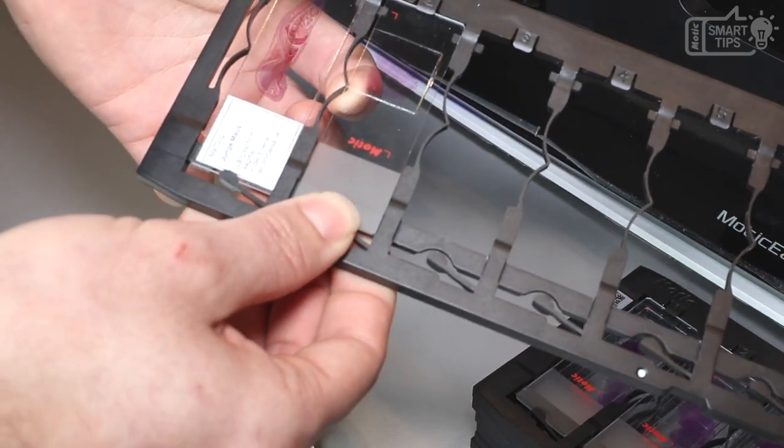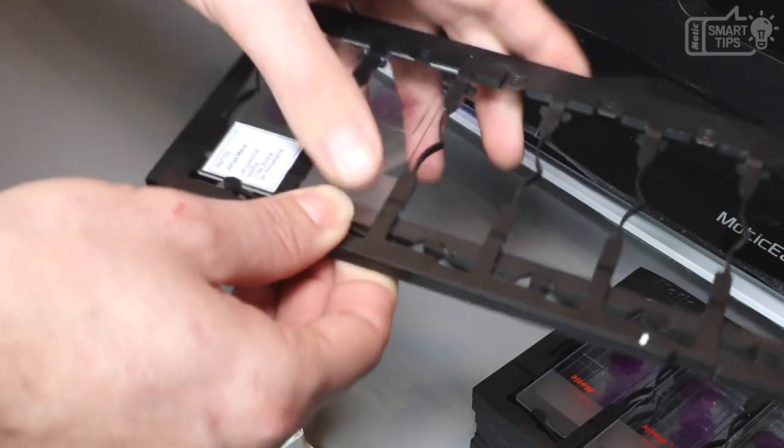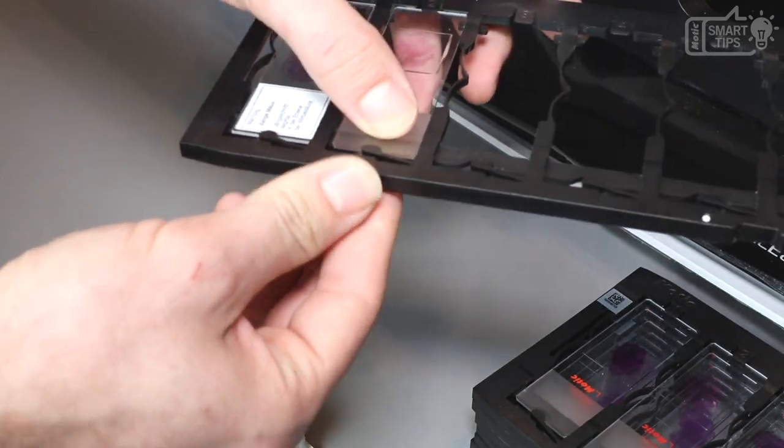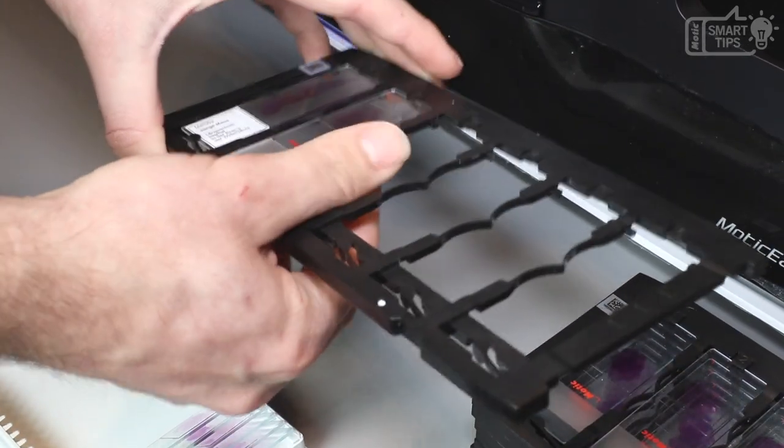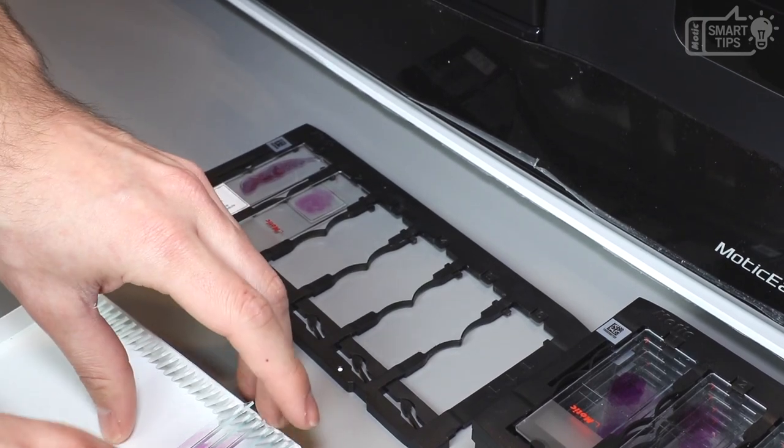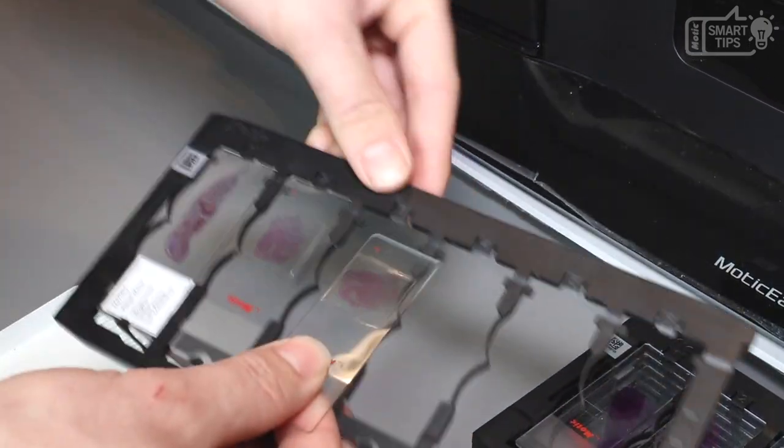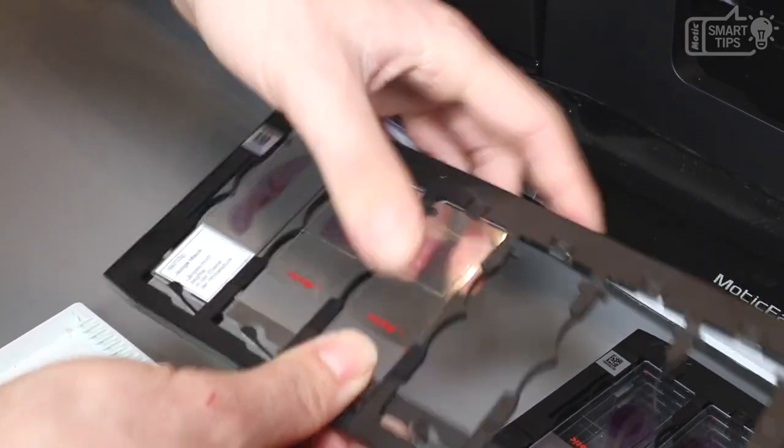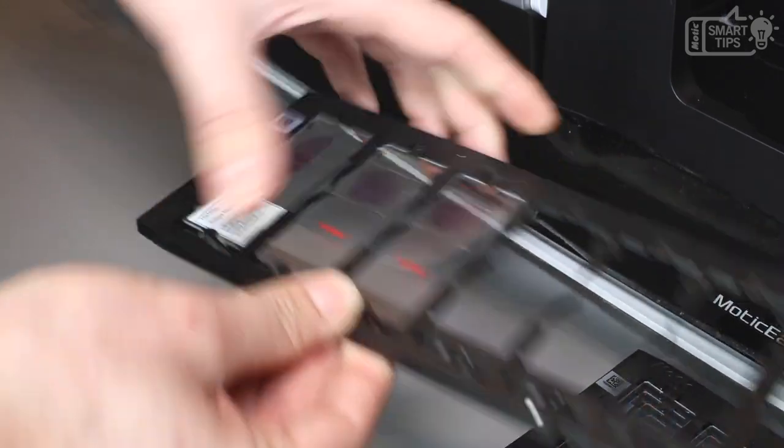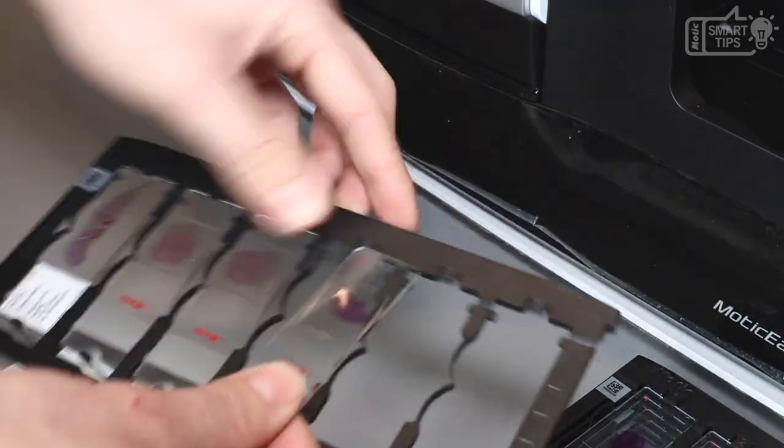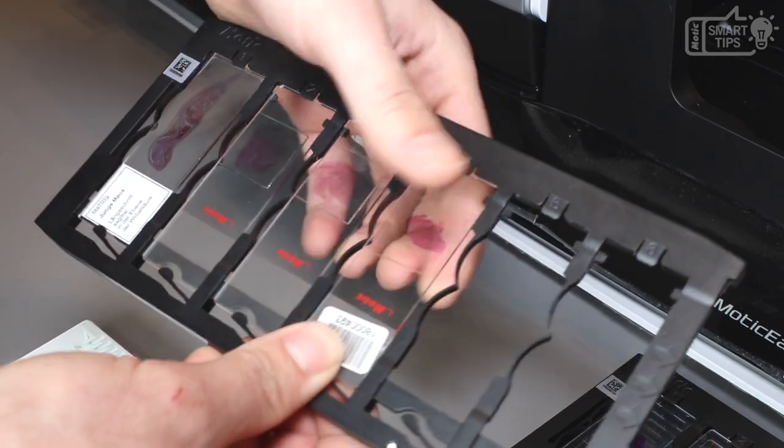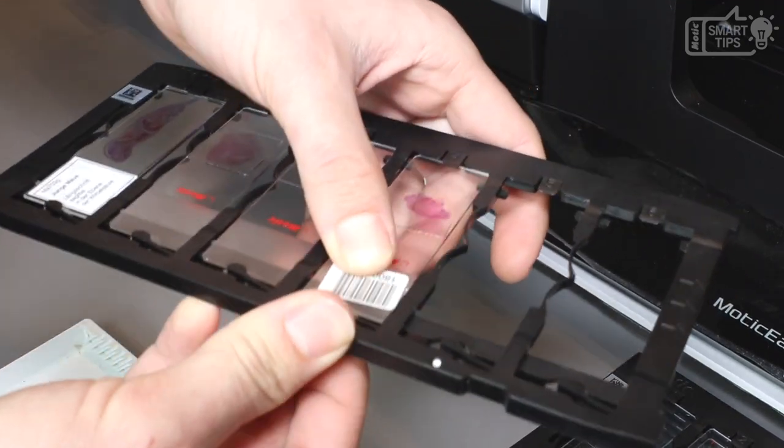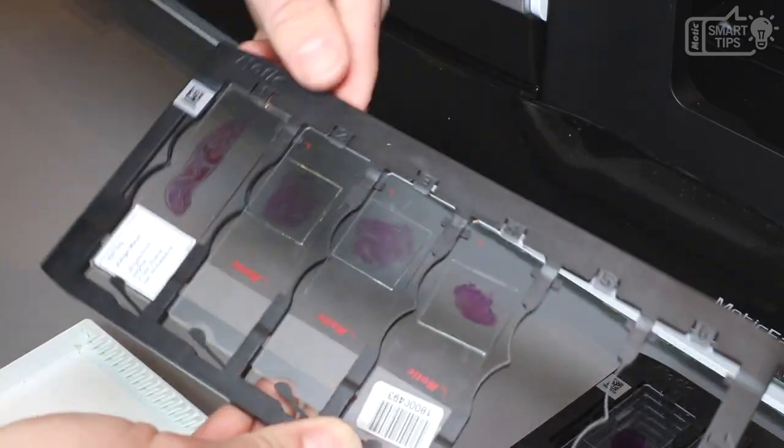At the same time you push the spring outside and now lock it in place. Now rinse and repeat for all the slides, it doesn't take a lot of time. As you can see, just some easy motion once you get it going. And I will leave two blank slides purposely to show you what happens with the software.